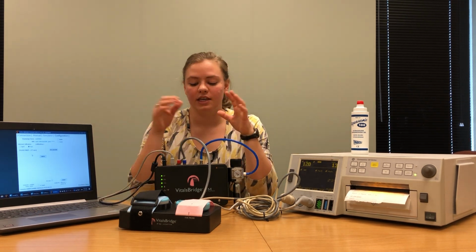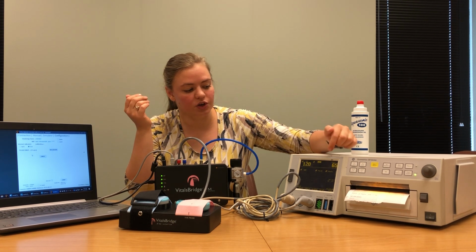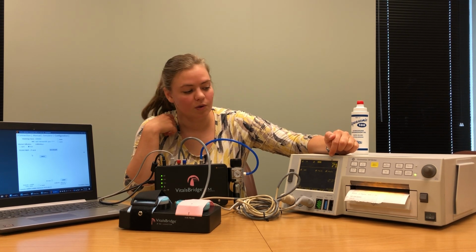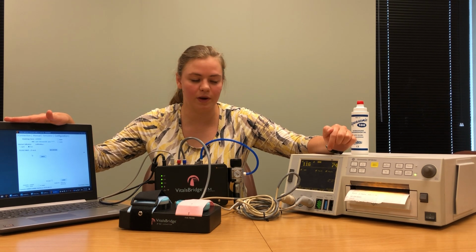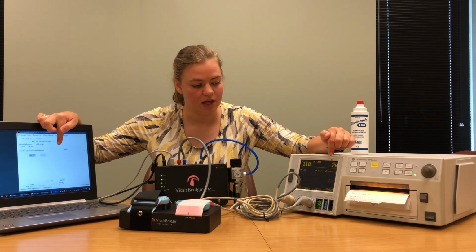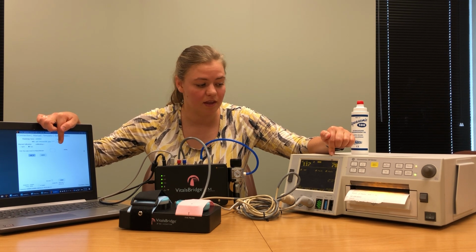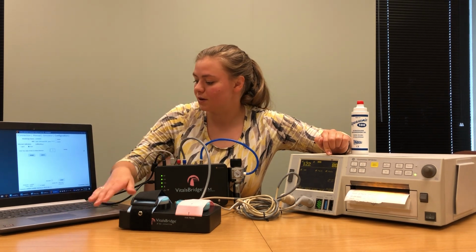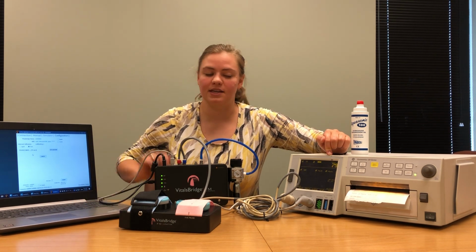You're going to hear the VitalsBridge pump starting to go, and you're going to see the TOCO value rise. We'll wait for just a moment, and then when the countdown has finished, we're going to enter the TOCO value on our patient monitor inside the box on screen. Enter the highest stable TOCO value you see. The highest one I've seen is 78, so that's what I'm going to enter into my software. And I'm going to select Submit.